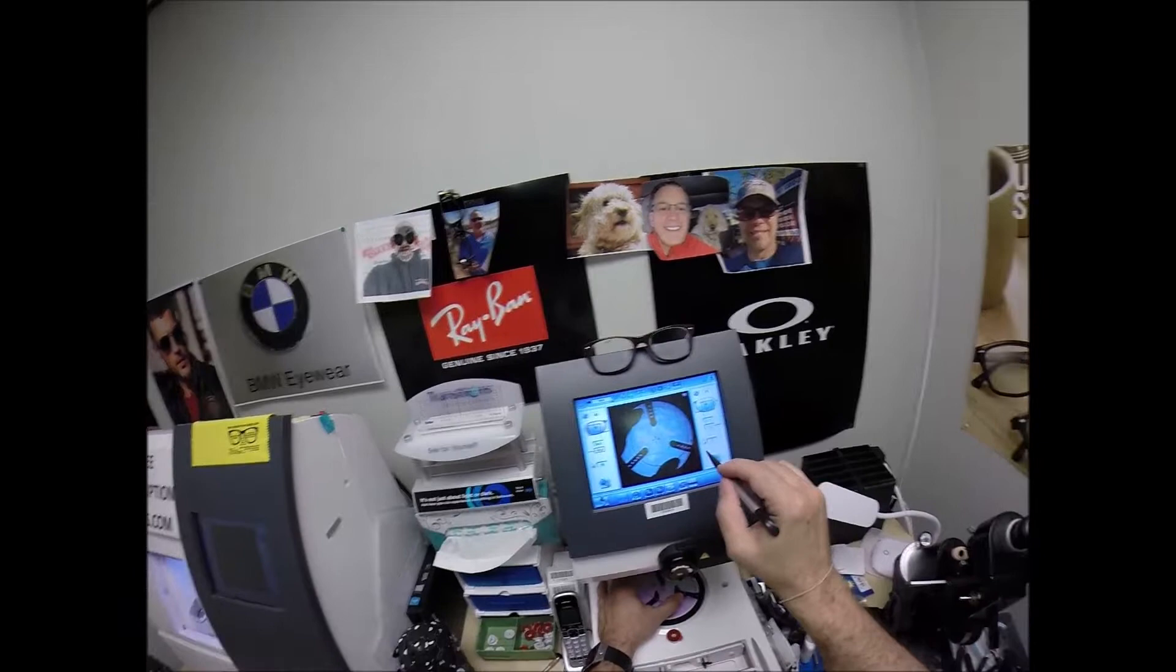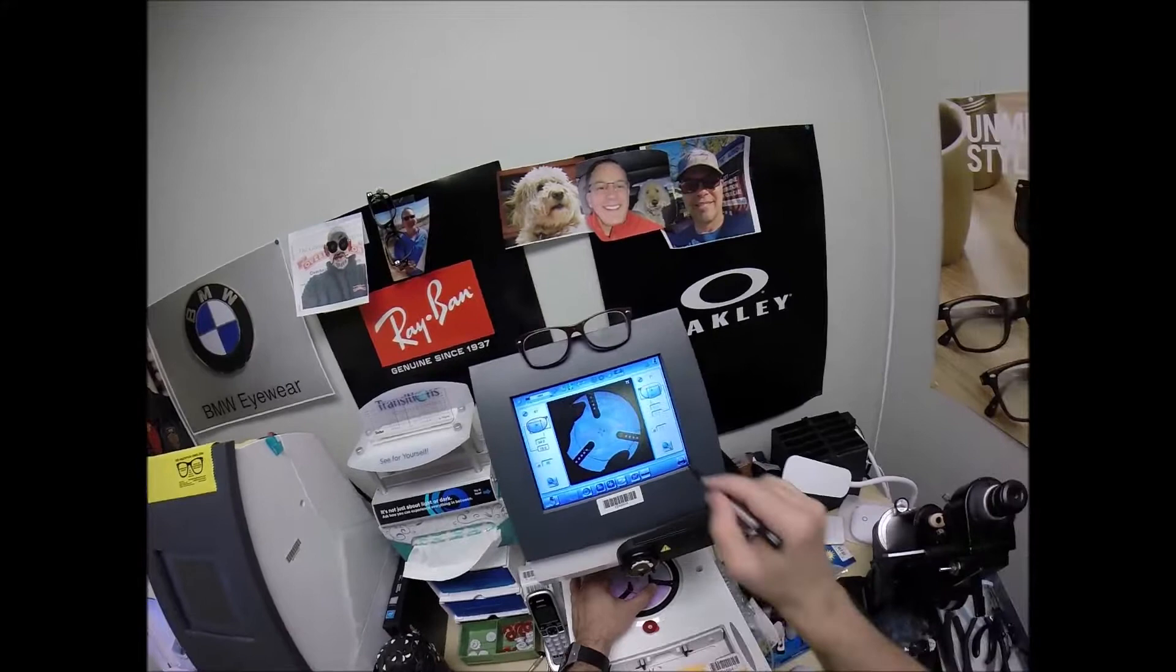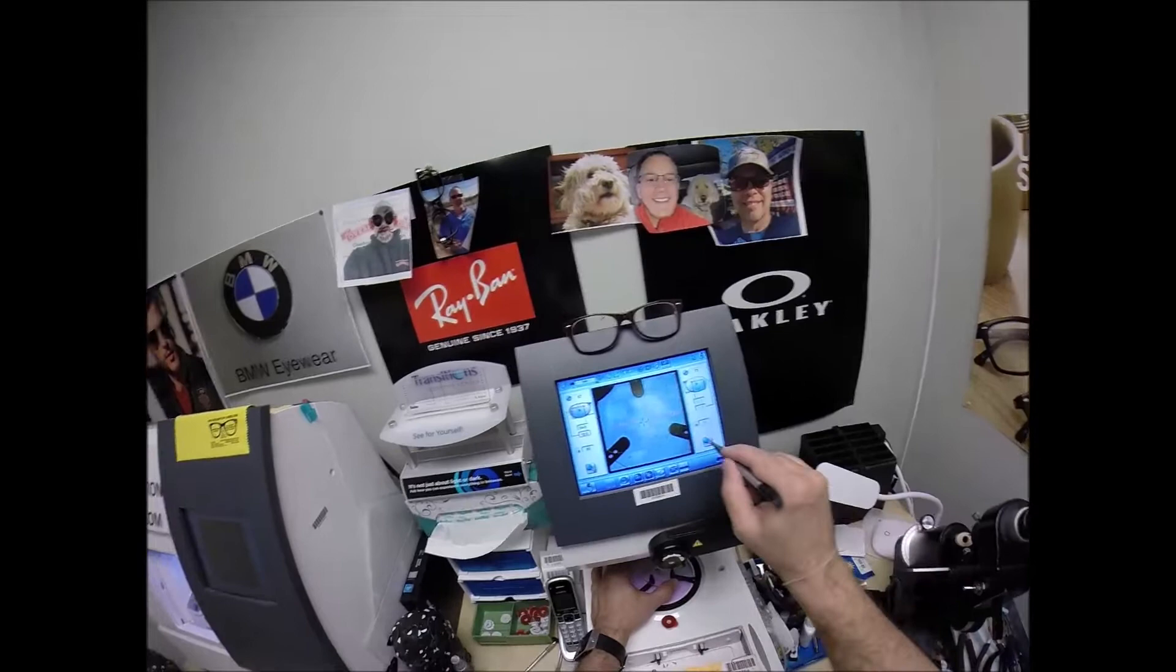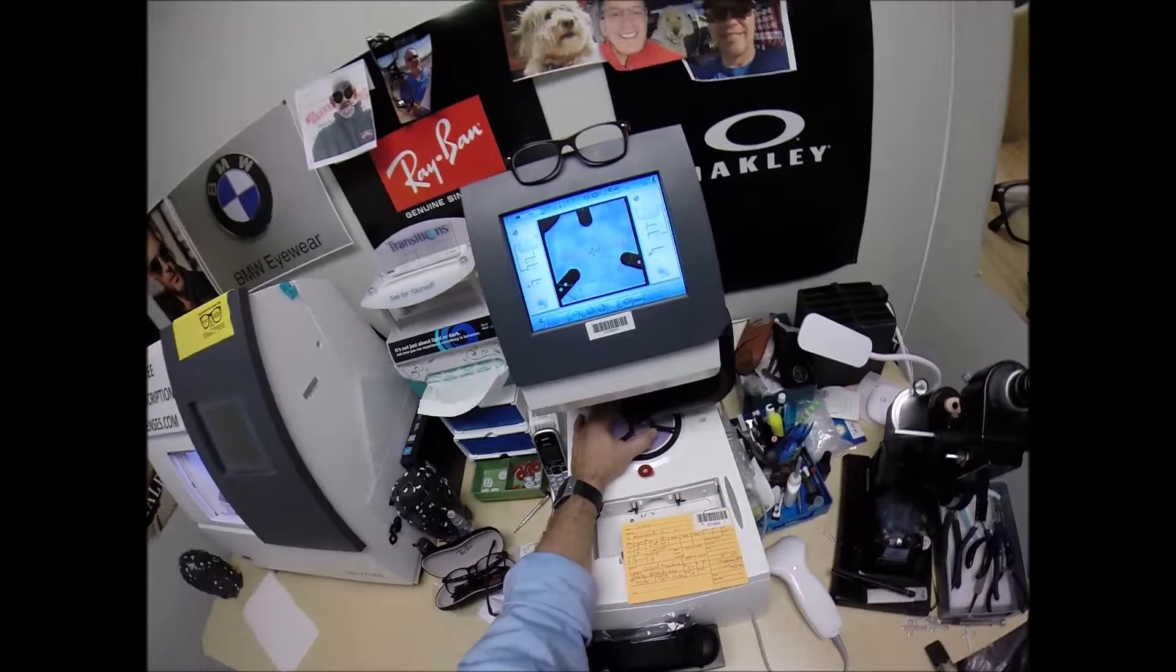Let's do this. Just making sure the lens is large enough and it is, although this little arm is in the way. I don't like when that happens, but it can be rotated, but I don't need it to because everything is laying out just perfectly. Hit that button. The arm is going to come down place the block onto the right lens.